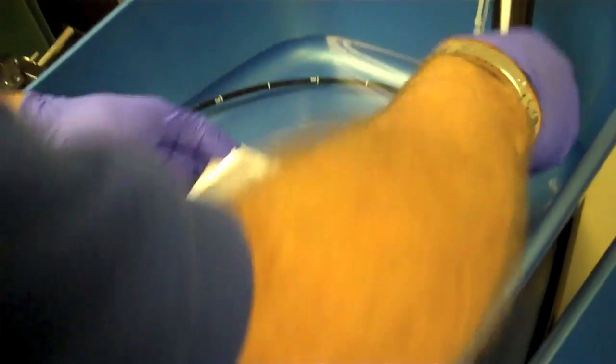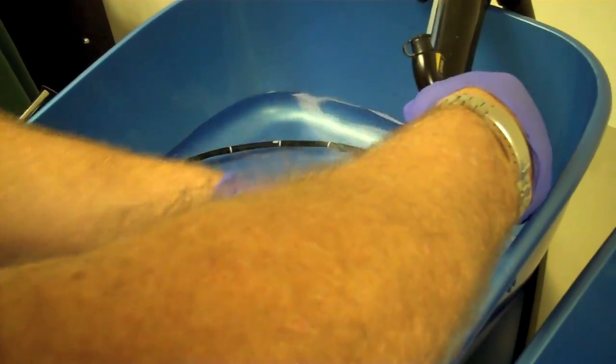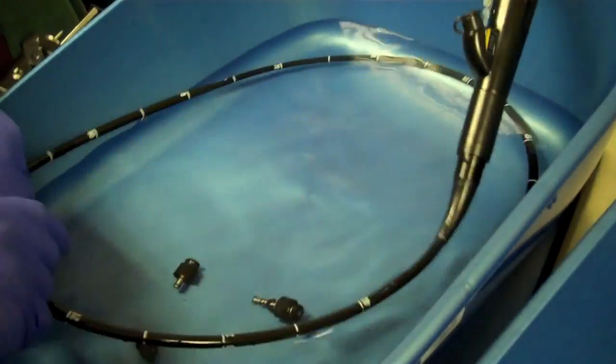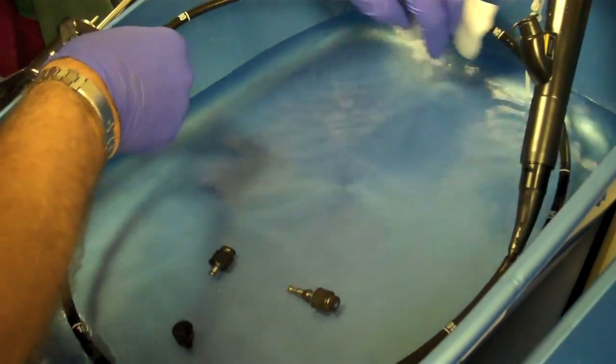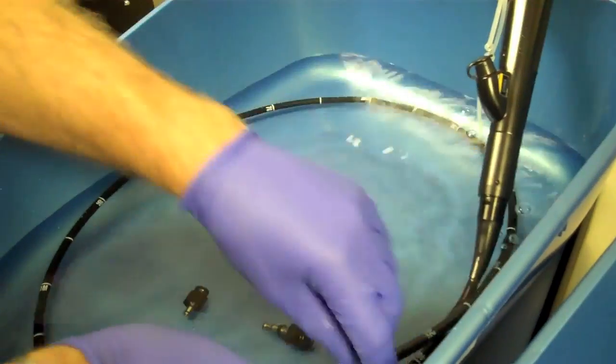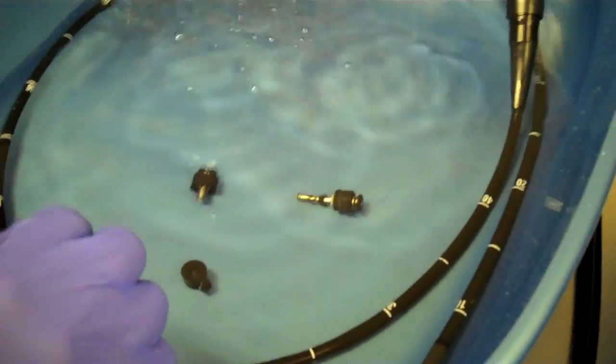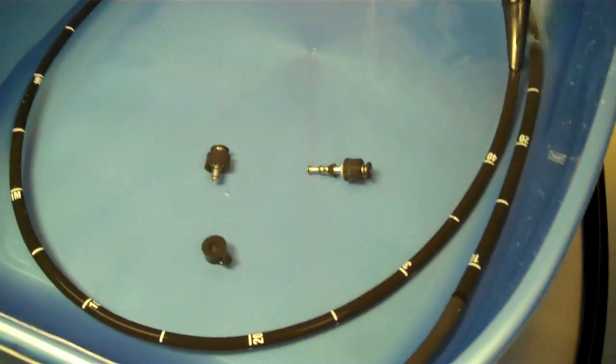Now give the insertion tube a good clean down. Taking care to be gentle with the rubbers, not stretching or pulling them. This can cause your endoscope to leak if you were to pull it and break any of the rubbers.